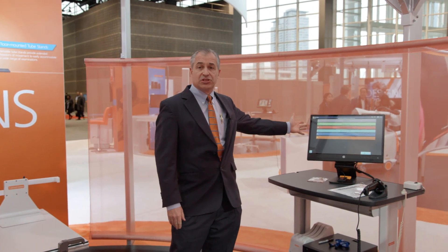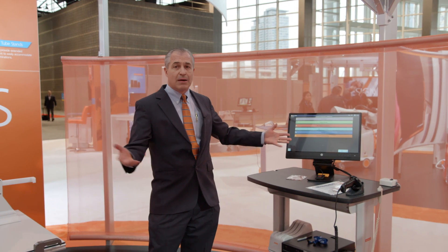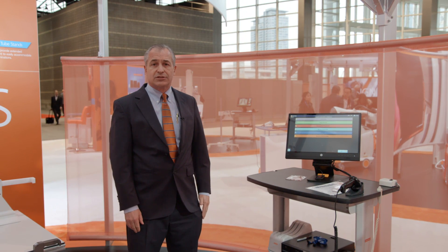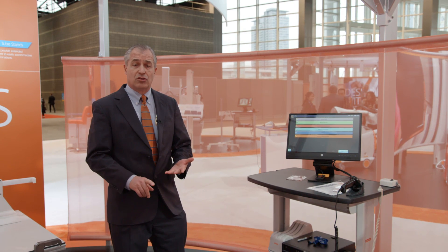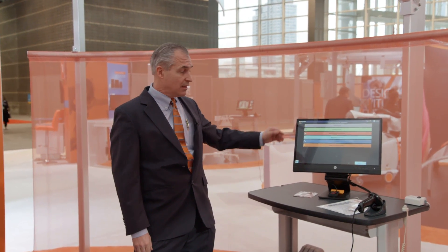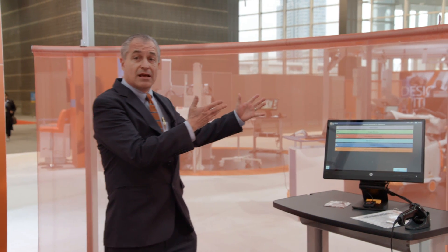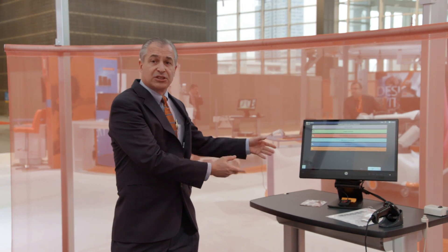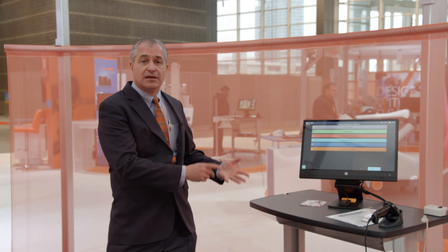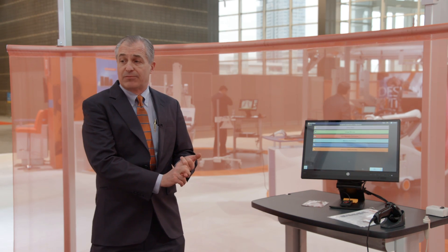From a digital side, we have the direct view interface that's common to all our products. We also have consoles that are analog from the Odyssey and the Q-Vision if you don't have a digital system. The system also has all the options that all of our digital products have, and it can be used with both the DRX Plus or the DRX Core family of products.